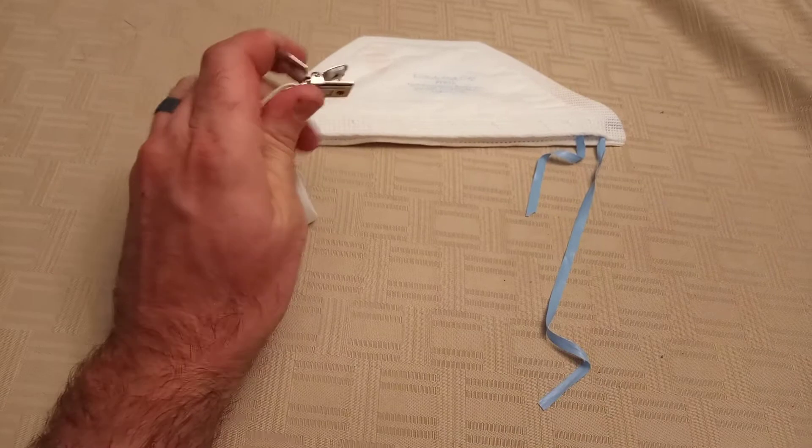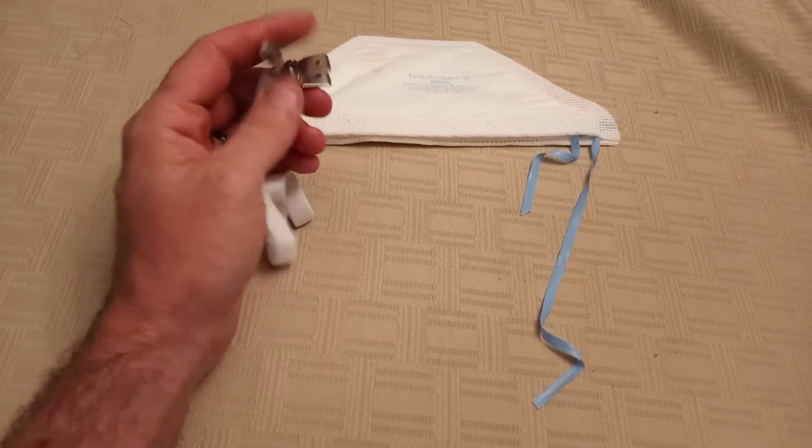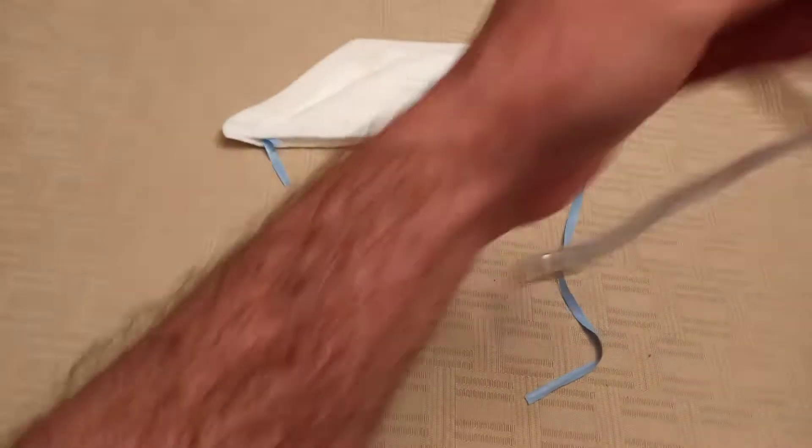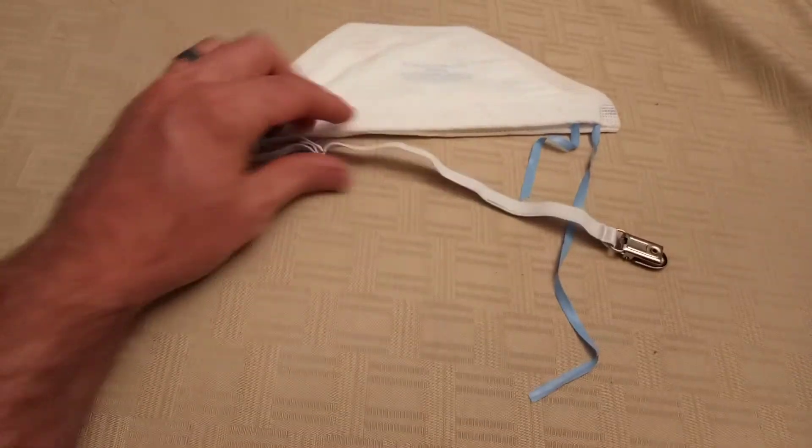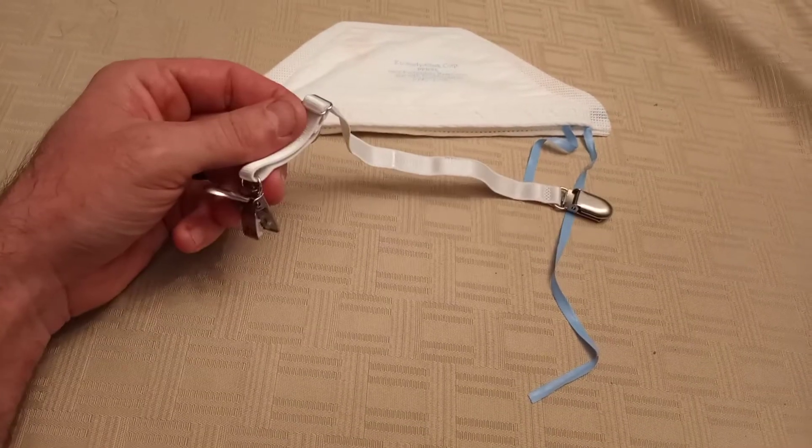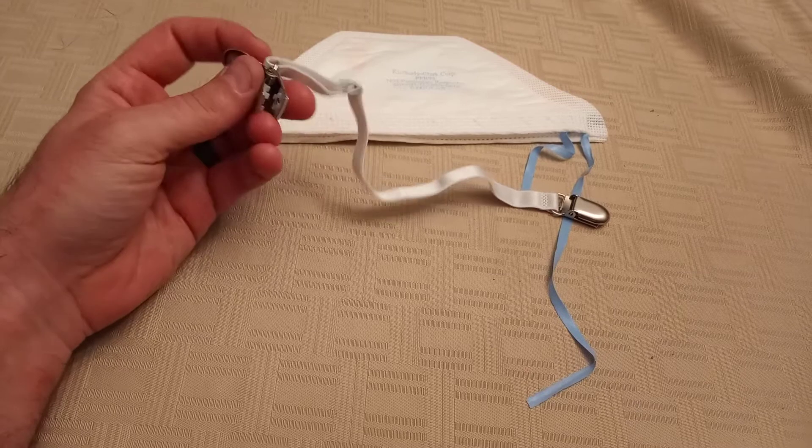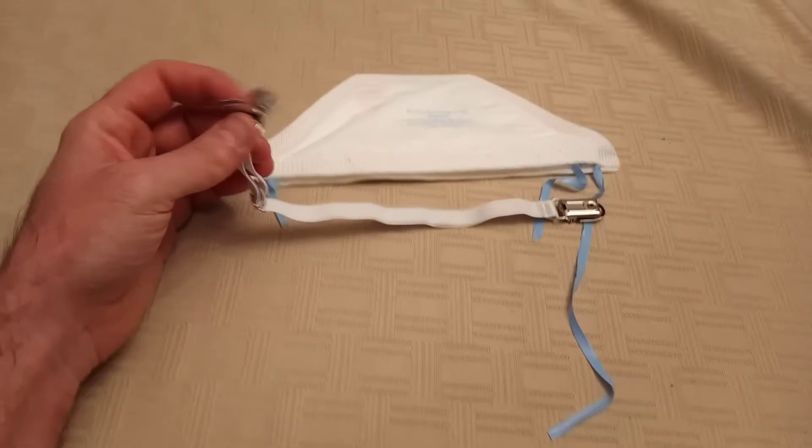It's got a very good clamp on the end of it. You can get them in just the right size to fit around a typical adult's head. Adjustable. Like, $10. Bought me like eight of these or something like that. So, cheap.